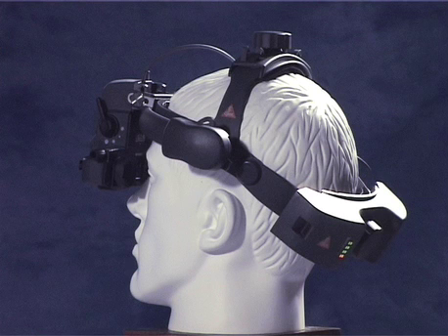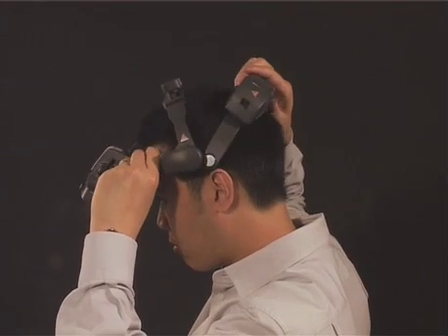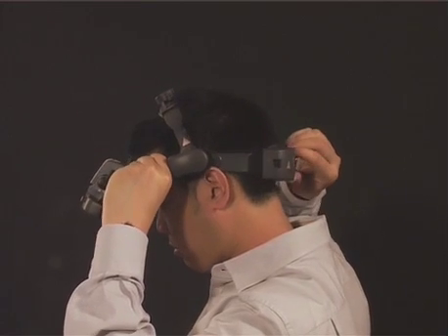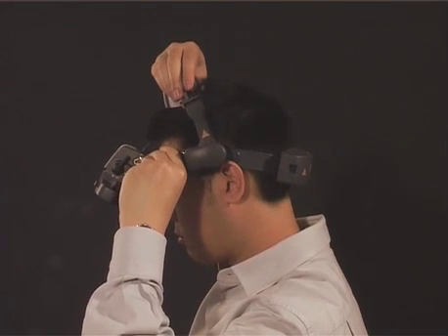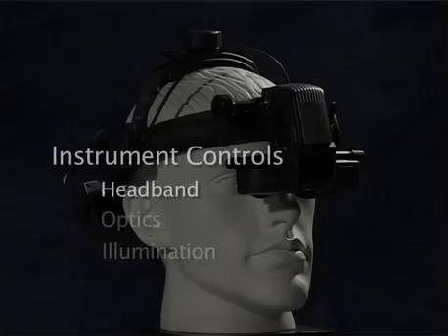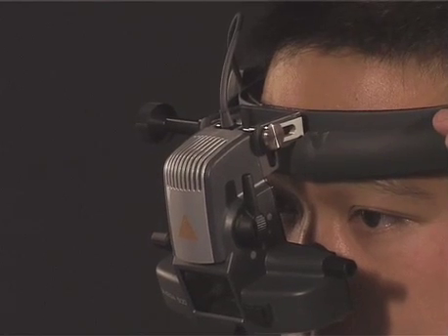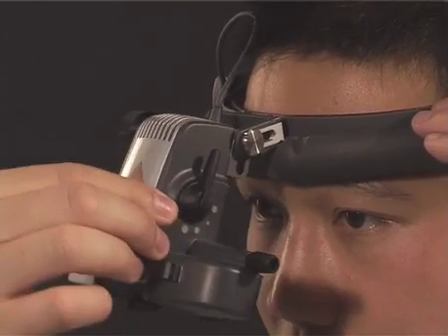The headband is adjusted for position and comfort using 2 knobs. The one at the back controls circumferential adjustment so that it rests firmly and comfortably with no unwanted movement when tilting the head. The knob at the top adjusts the vertical position of the instrument, which should rest just above your ears. With the instrument comfortably in place, you now need to adjust the position of the illumination and viewing system relative to your pupils.